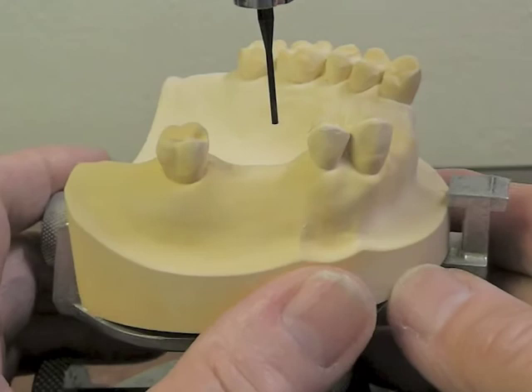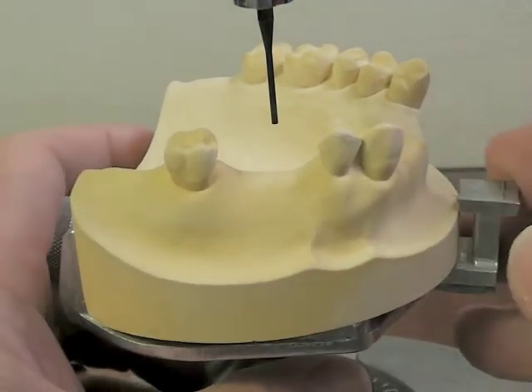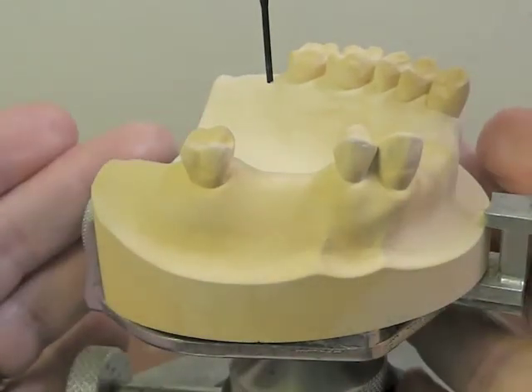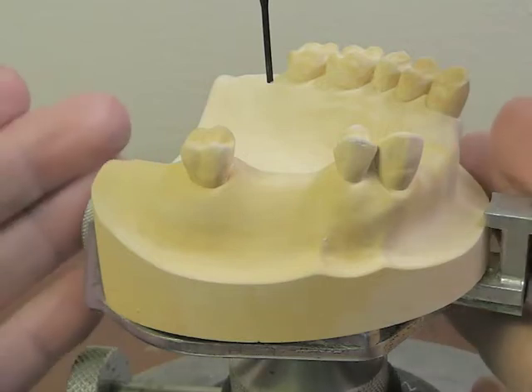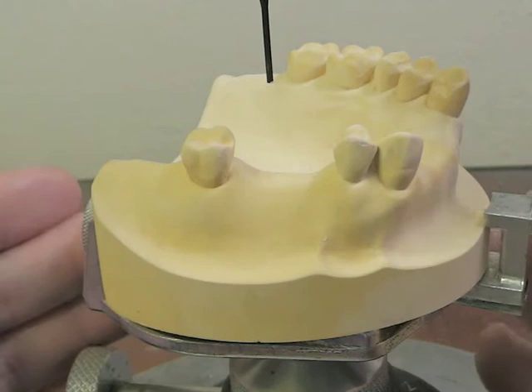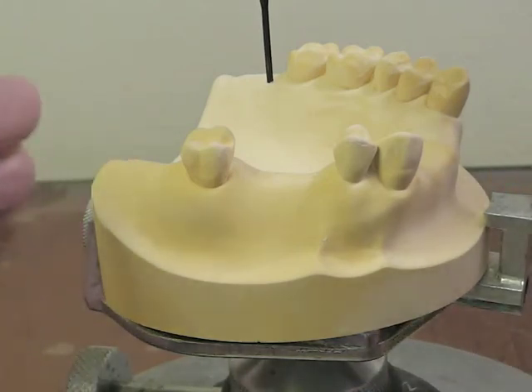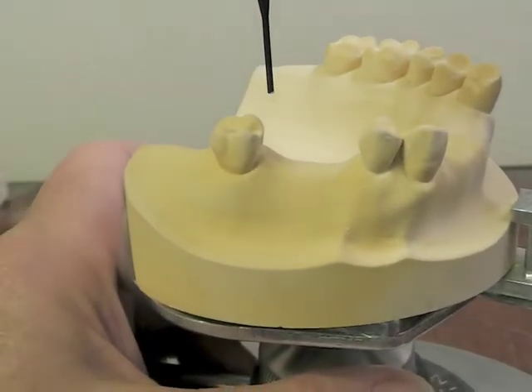The first thing that we look at on our cast is the guiding plane. We're going to look for a path of insertion for this partial denture that makes us have to make the least amount of adjustments on the teeth. We don't want to mutilate our teeth, so we're going to find a happy medium for a path of draw for our partial.